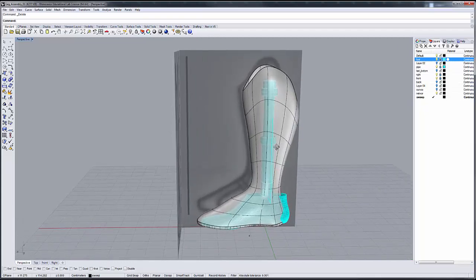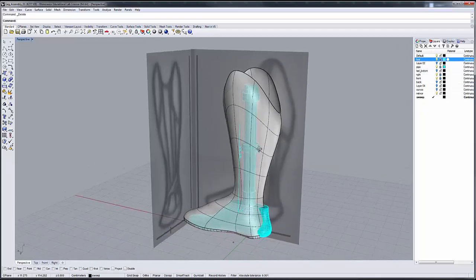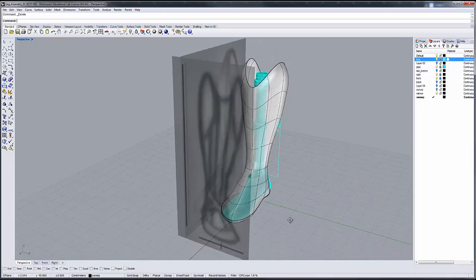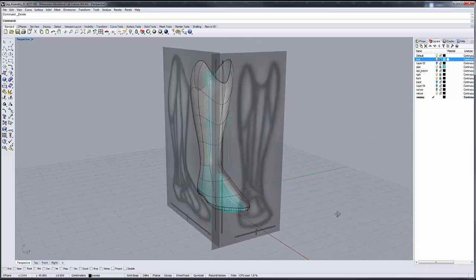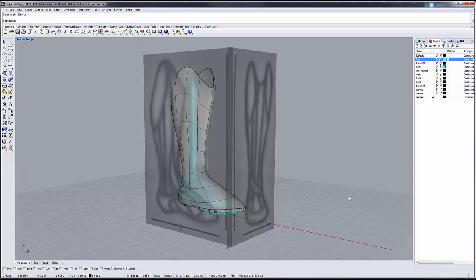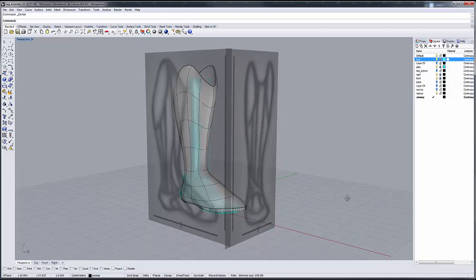My design is designed as a boot, and I'm actually going to use the boot shape itself as the sort of foot last. I'm going to go over how you can do that in your design. This is a chance for you to employ a lot of the modeling techniques that you've learned so far in the execution of this project to produce the shell for your prosthetics cover.